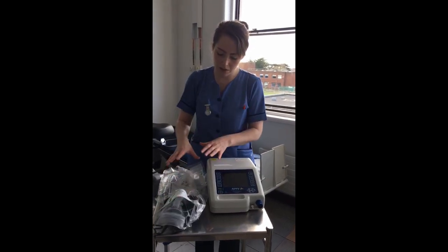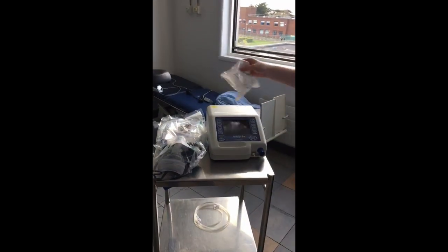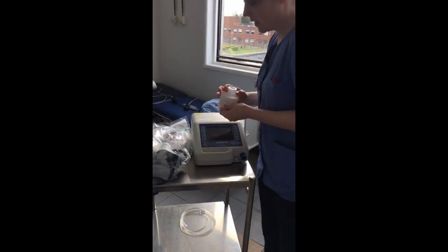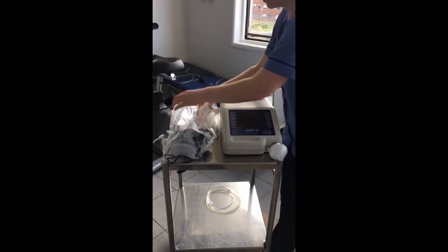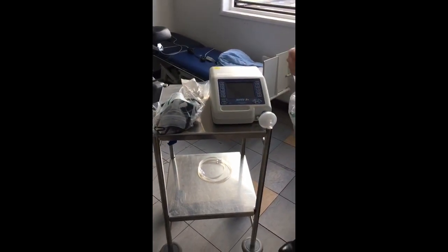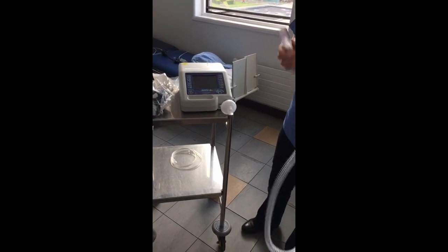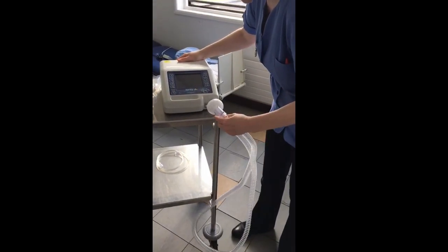So this is the equipment we'll need to safely set up our BiPAP. The first thing that goes on the machine is our filter — just be aware this can go on the wrong way, there is one correct way it will sit. Next is our tubing, which is clear. The ends are universal so there's no wrong way; we simply apply the tubing.